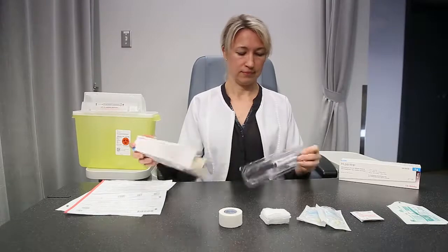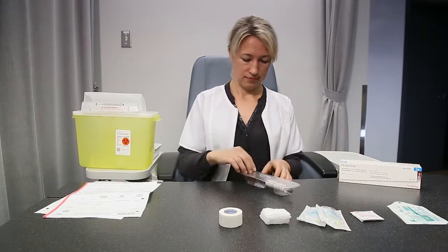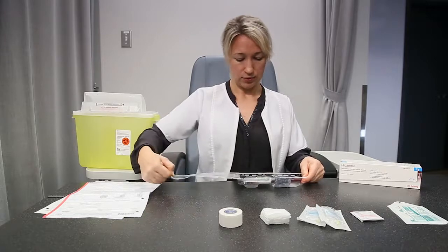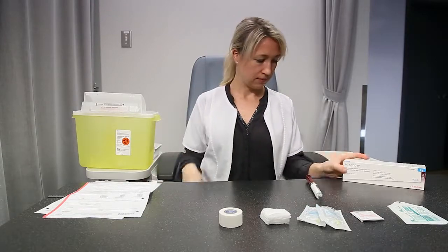You are ready to start the infusion. Remove the plastic wrap covering the syringe tray. Locate the lot number sticker and verify the expiry date. Inspect the product and the syringe. The product should be clear, non-cloudy, and free of particles.